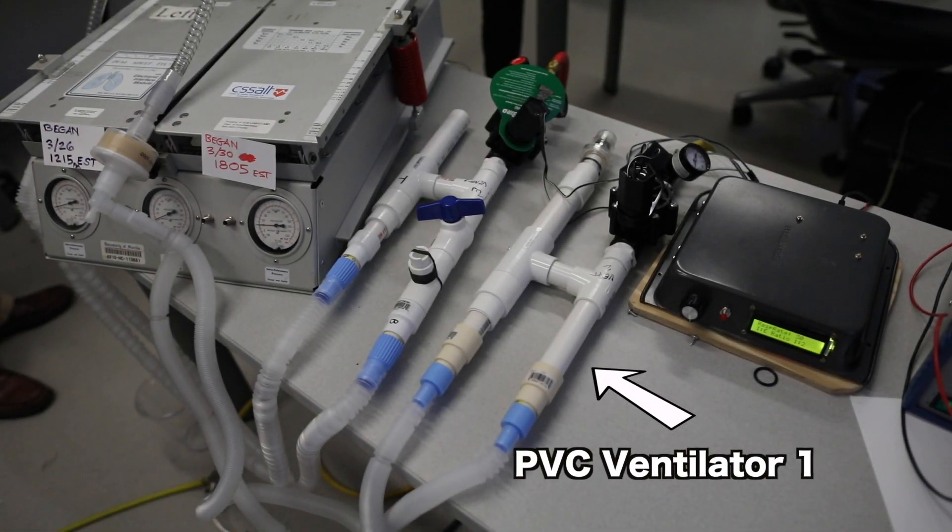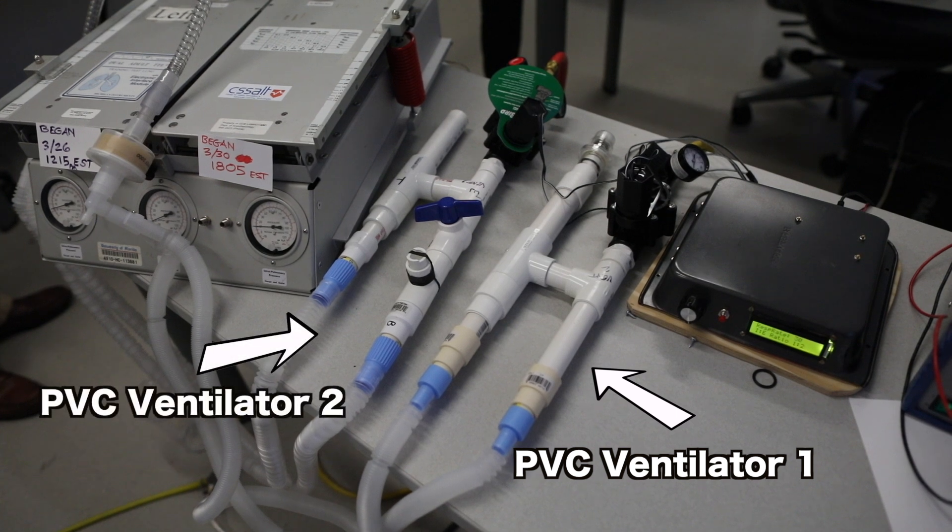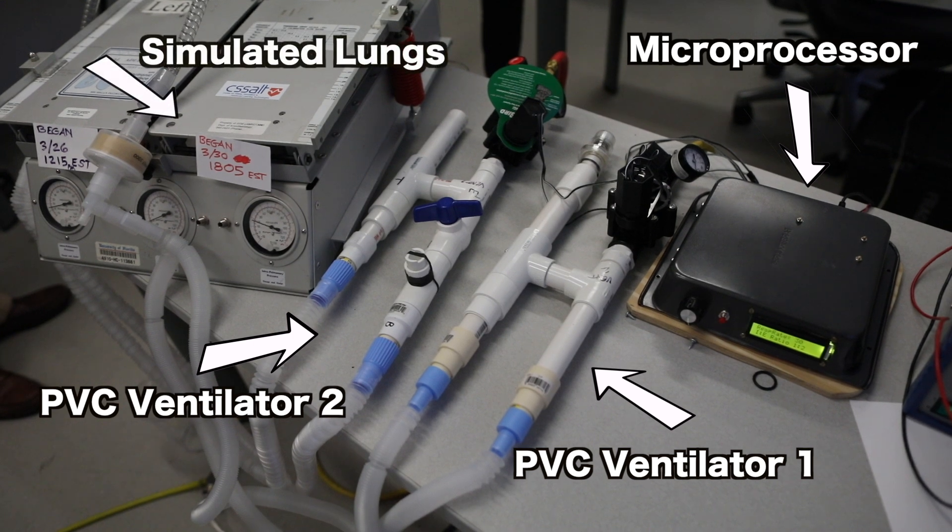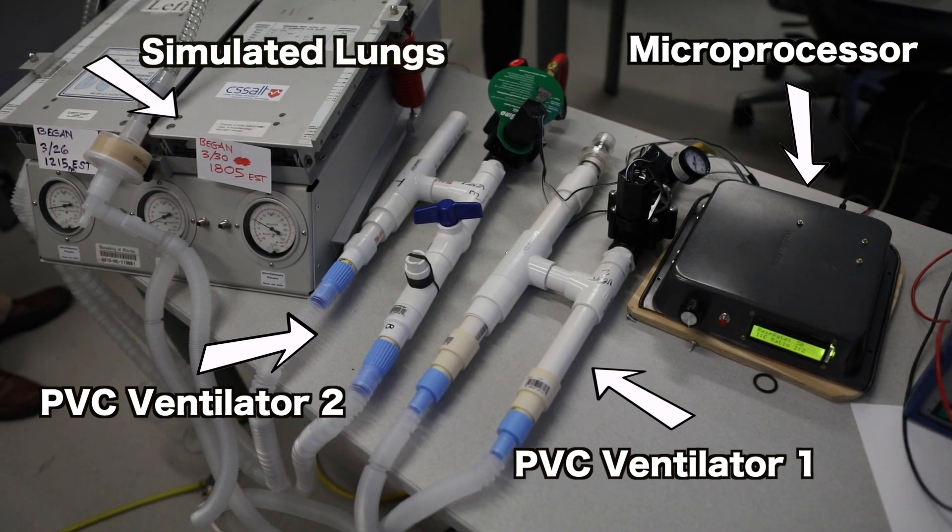When we were asked to do this project, we had insider information in the right sense of the word. We knew already that all the supplies traditionally used for ventilators were wiped out.